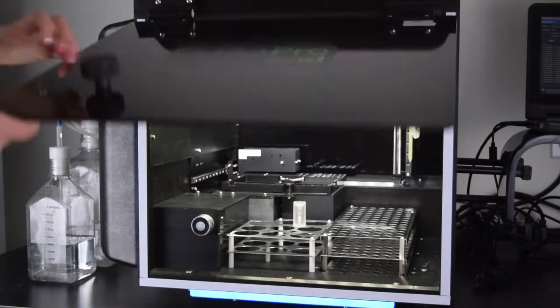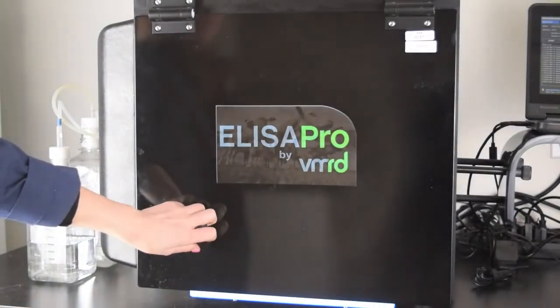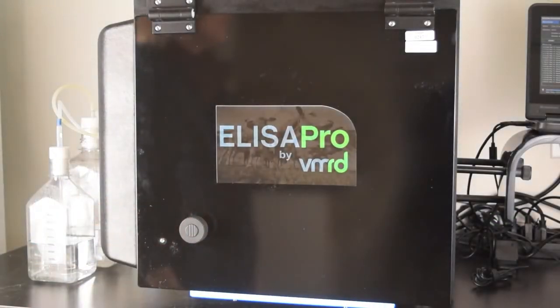While an assay is in process, this door remains closed and secured with a strong magnet to prevent any outside influence.